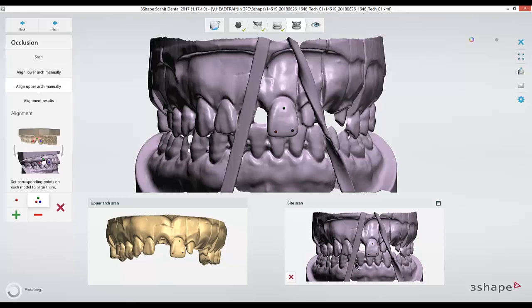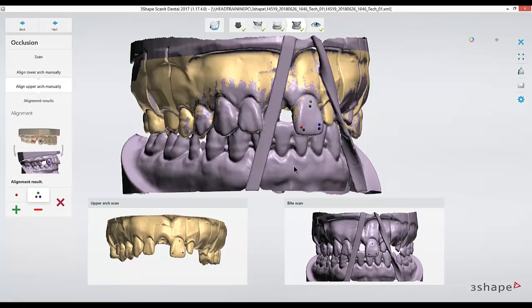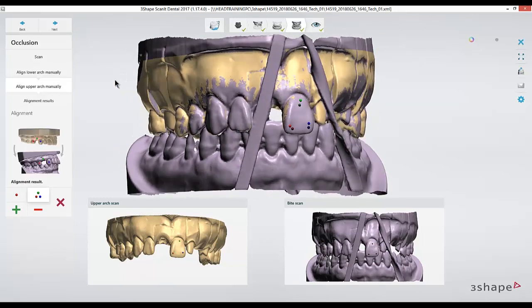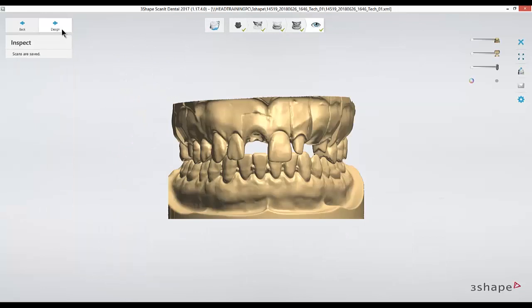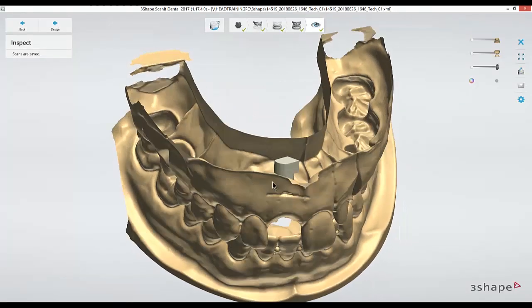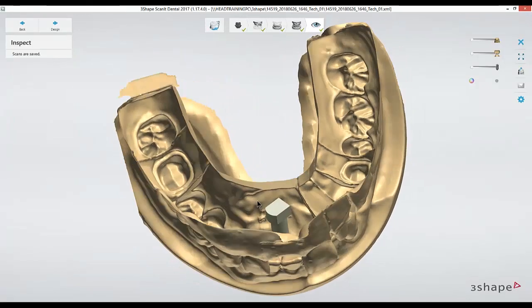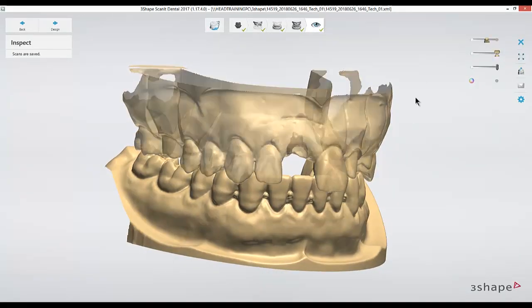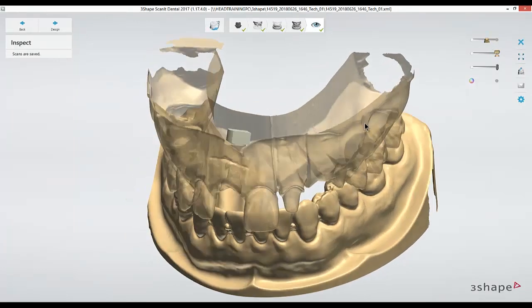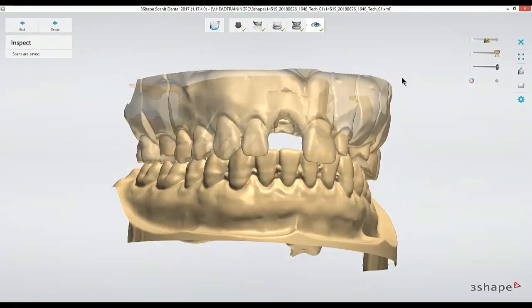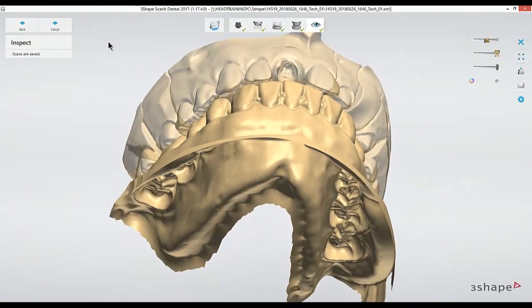Once the alignment of the bite is completed, we're finished with our implant scan, and we can see that the software at our final step should have placed an analog in the same position that our physical analog is supposed to be, based on where we lined up that scan body. And we should be ready to head right into design.